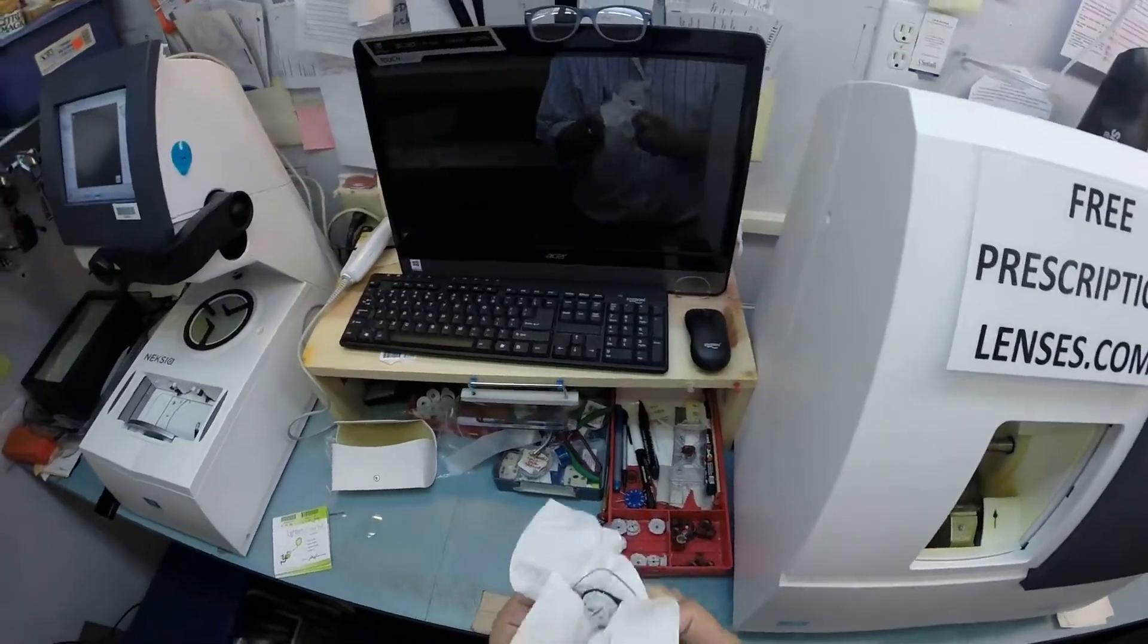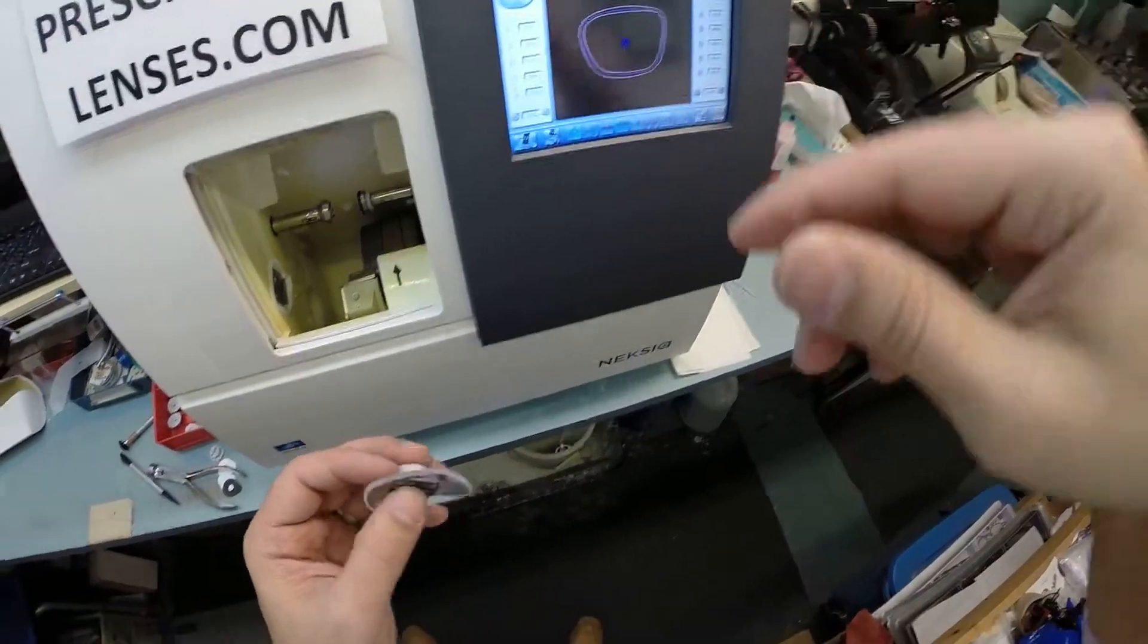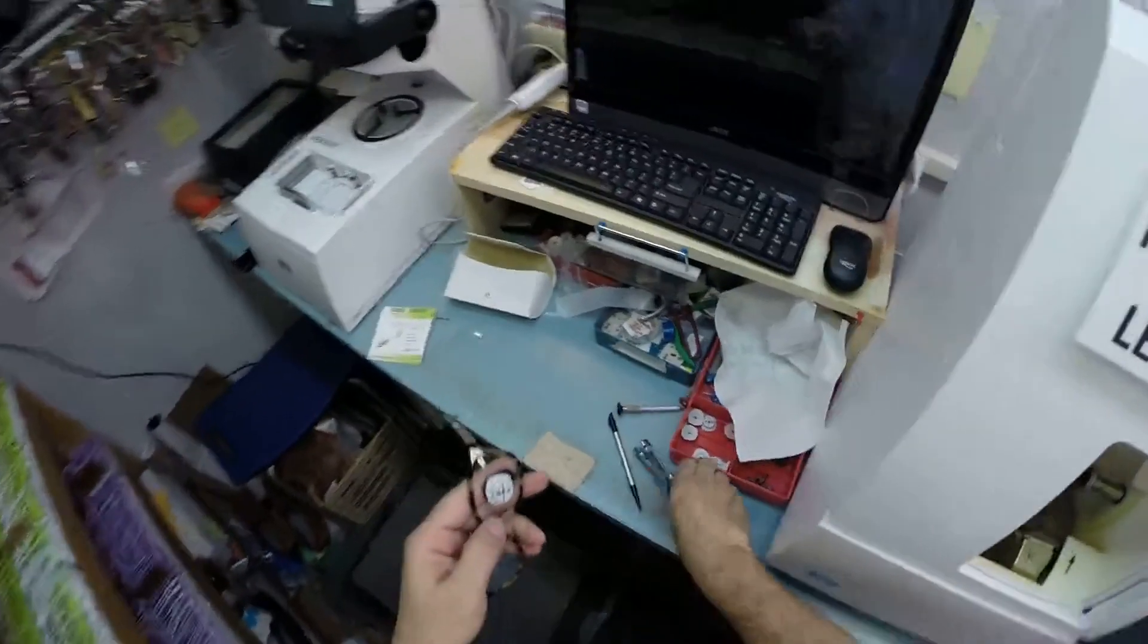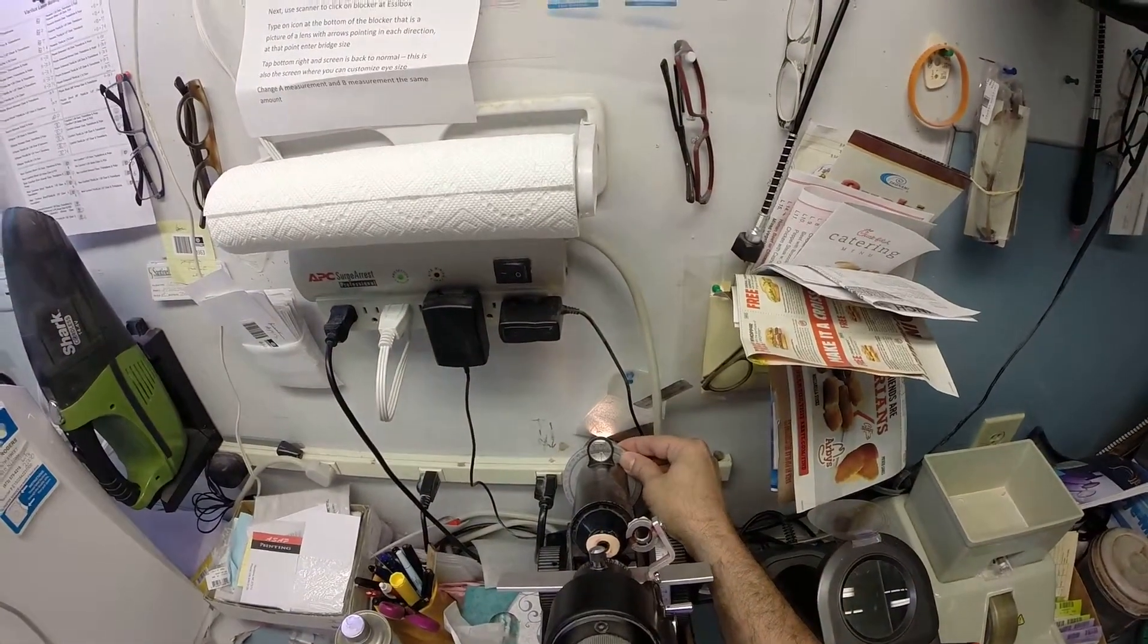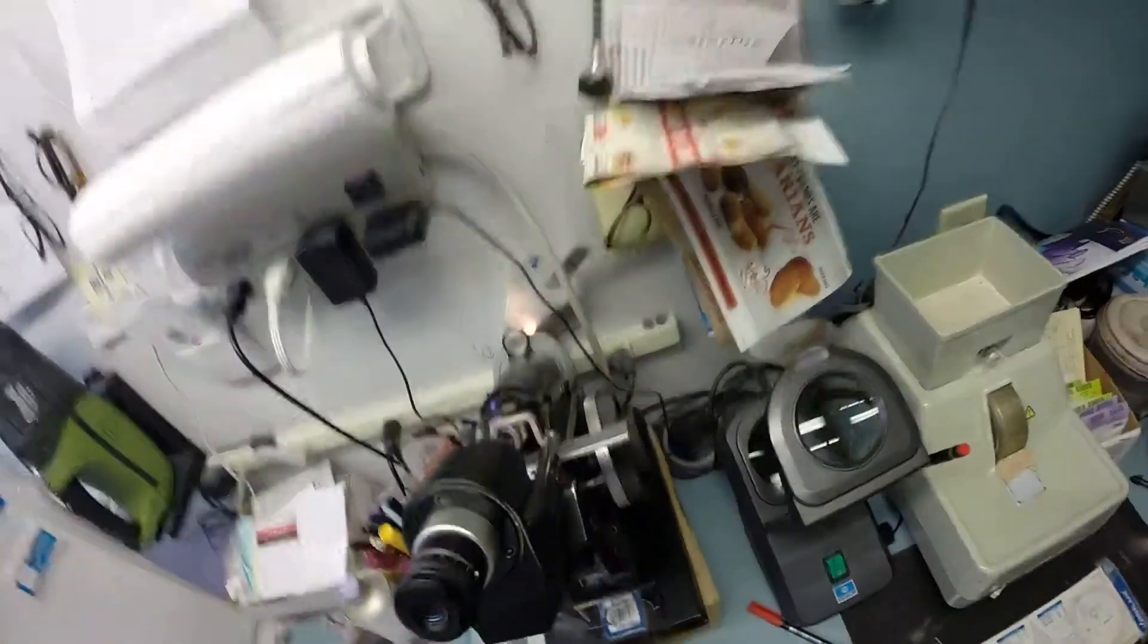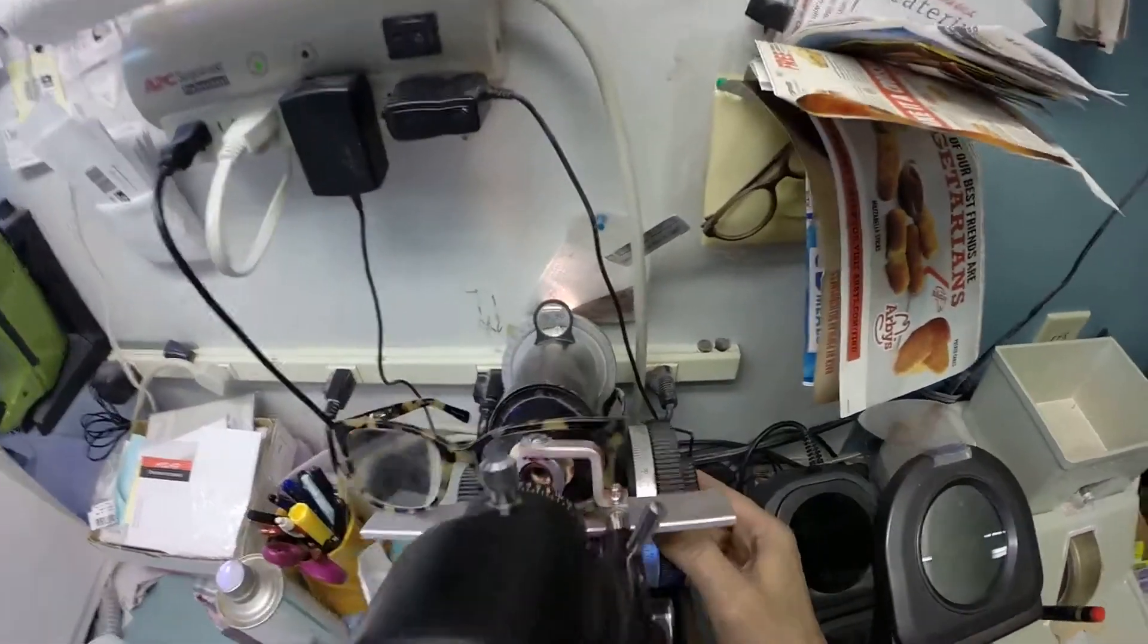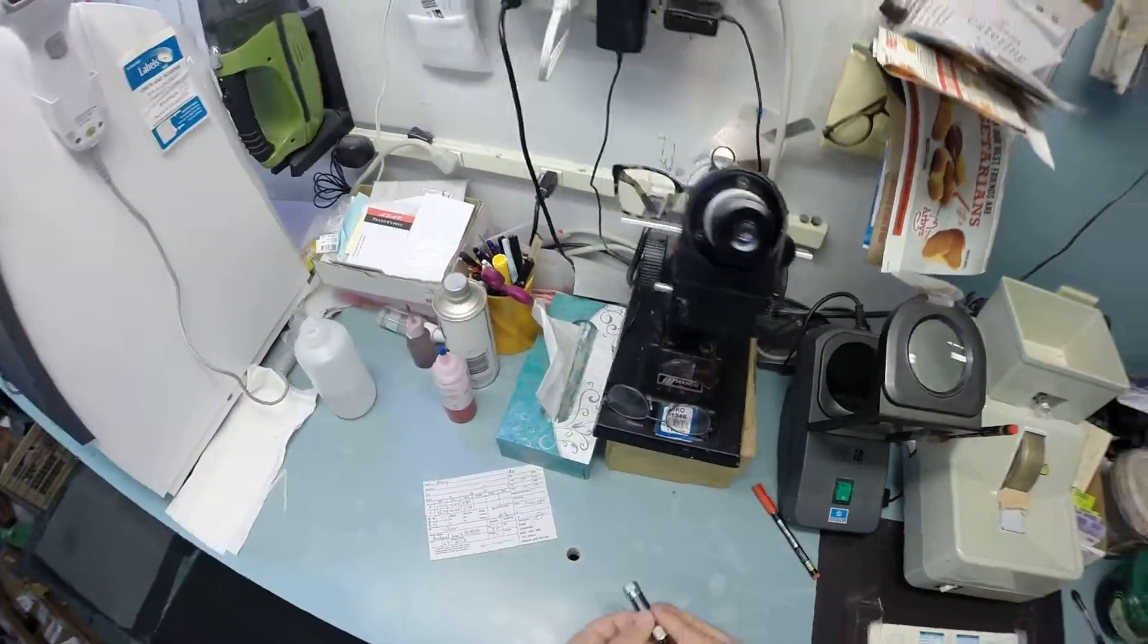So we're going to open up the chuck, take your lens out, clean off all the debris around the edge of your lens. Look at that. That's a good piece. That's like when it all comes out of the lint trap in your dryer in one piece. So I'm going to take your frame, tuck the left lens in at the outside edge using my thumbs. I press down that snaps in easily not to force it into the frame. Take the sticker off. Now we're going to turn the fine tune knob to 78. We're going to put that there, put the lens in over that red dot and I am getting, come on flashlight, plus 250. Check your astigmatism correction. I'm sorry, 275. I need better glasses. See, we're one tick mark away from three. Check your astigmatism correction. We ended up at 250, halfway between two and three. So that is made correctly.